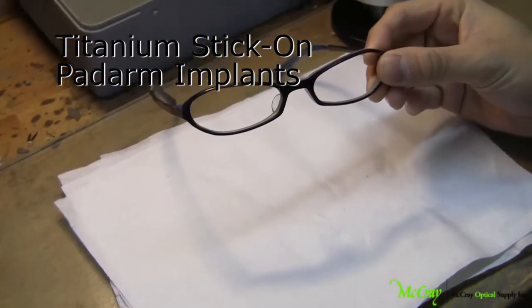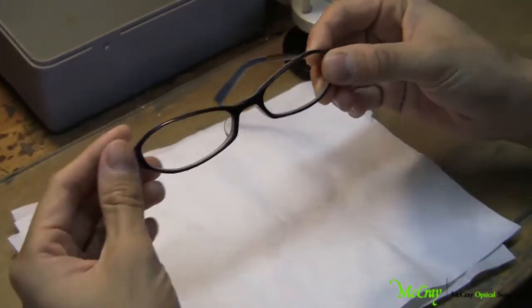Hi, today we're going to do a demonstration on how to apply the stick-on titanium pad arms.